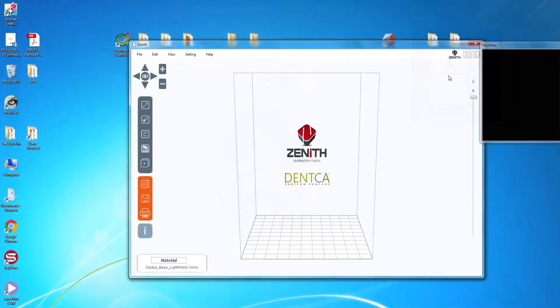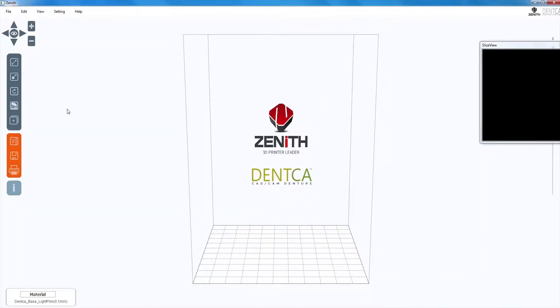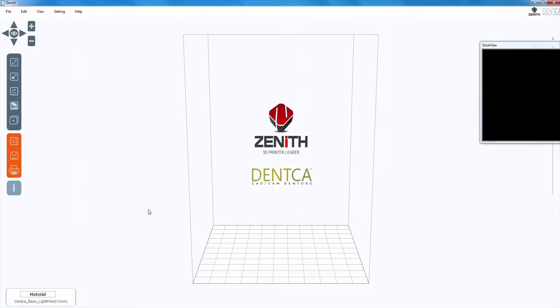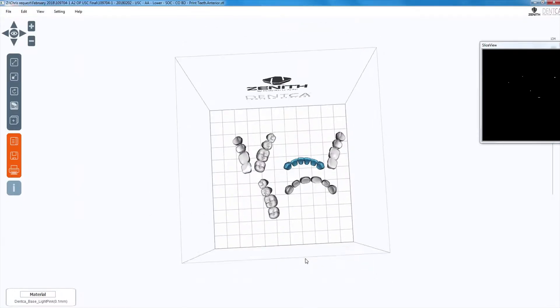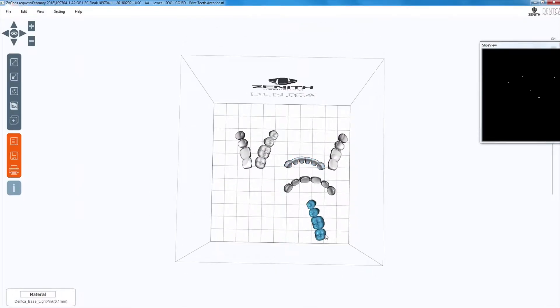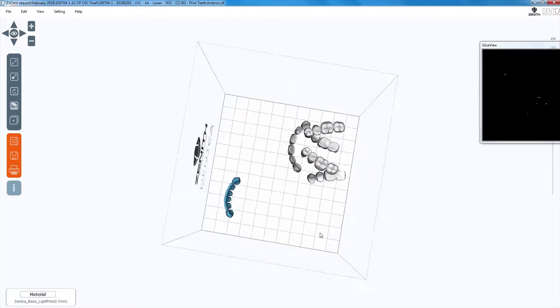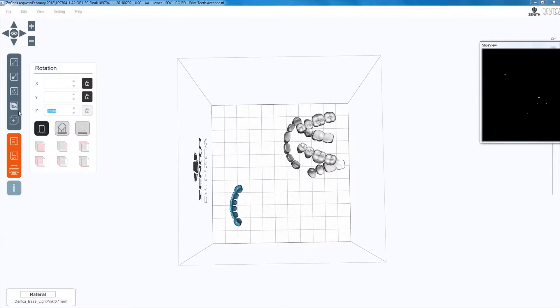For the teeth, load up all tooth files following the same procedure and arrange them with the occlusal surface facing up. It's important to arrange the inclination of the teeth so they are as close to the base as possible in order to save printing time. It is also recommended to arrange them on a single line for easy printing and alignment.